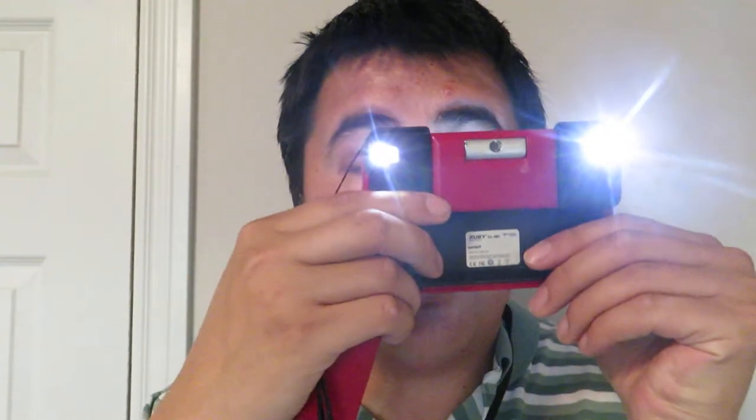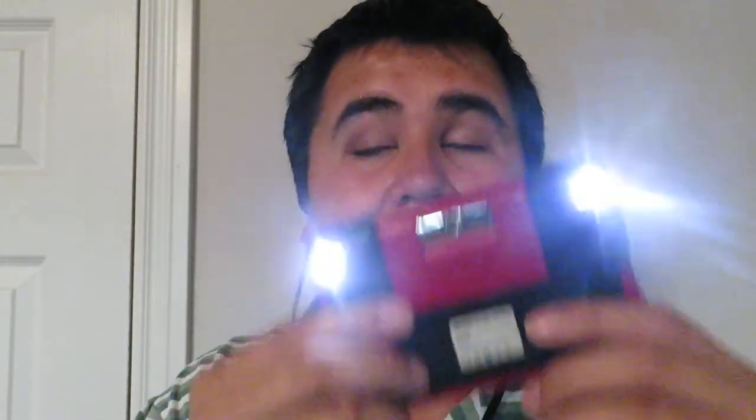As you can tell, you can do different modes — different modes of however you can see color. Some people read better with yellow on black, black on yellow, green on black, black on green, white on black, black on white. And of course you've got your regular color. So let me go back — you've got your zoom in and zoom out buttons.